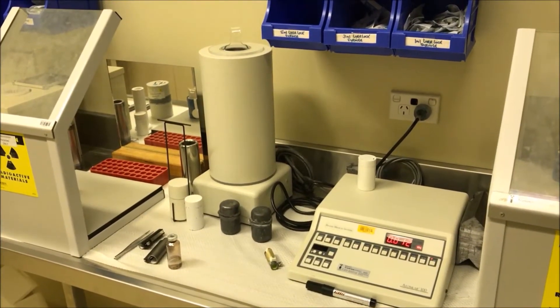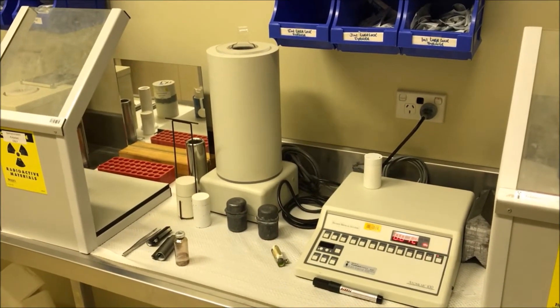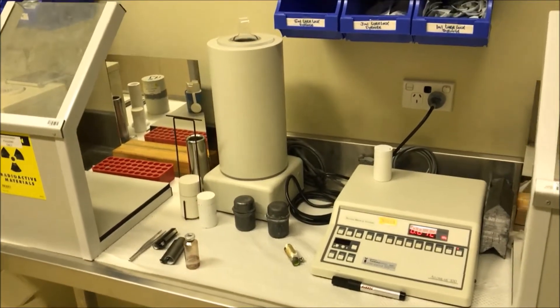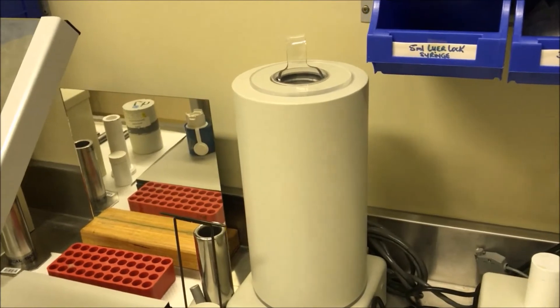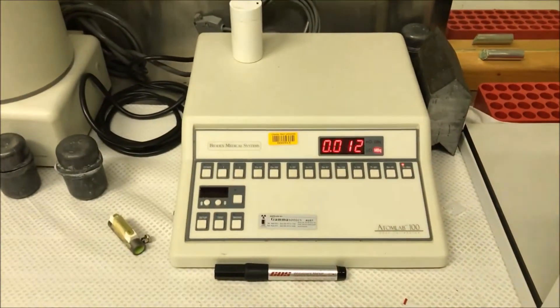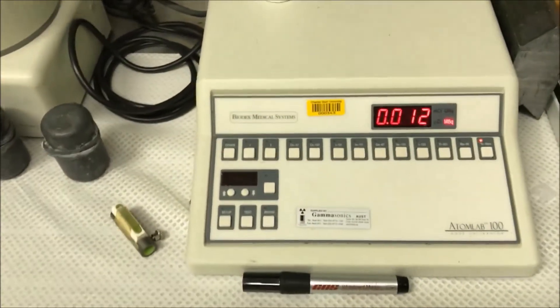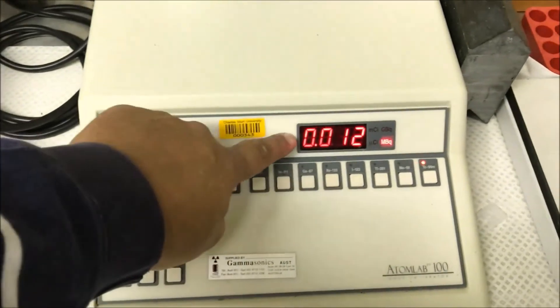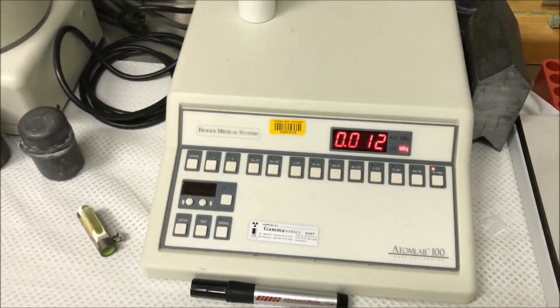The third experiment looks at radiation decay and we actually have it set up. I've given you data for three separate samples, but this is just how we would do it. We have a dose calibrator with a chamber where we put our source, and then we have the recording device. We would choose a radiopharmaceutical or an unknown radiopharmaceutical and it will give us the amount of megabecquerels recorded at any given point in time.